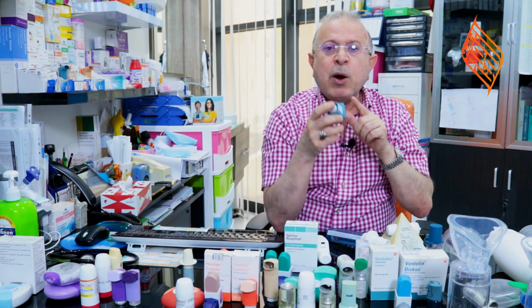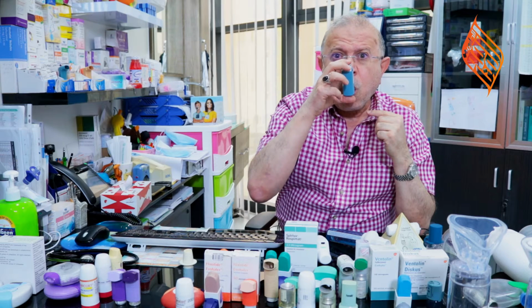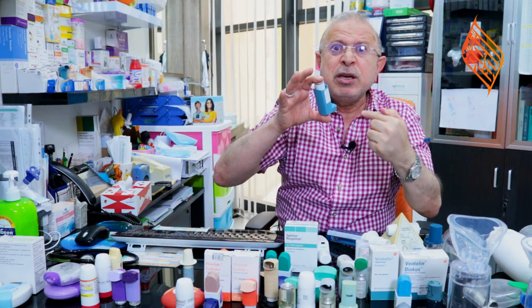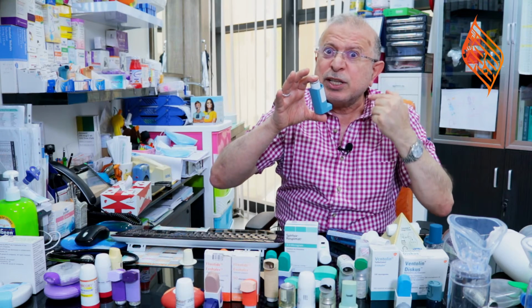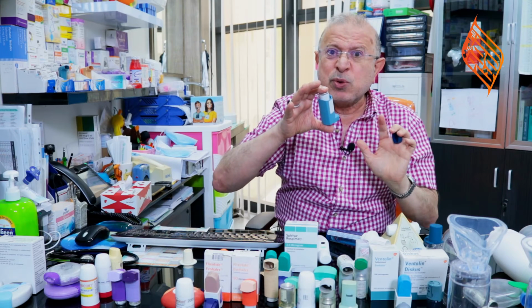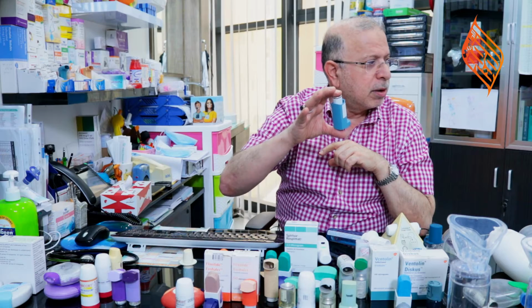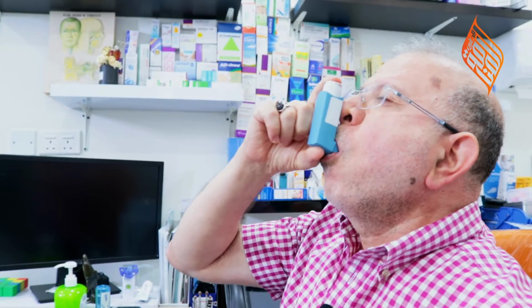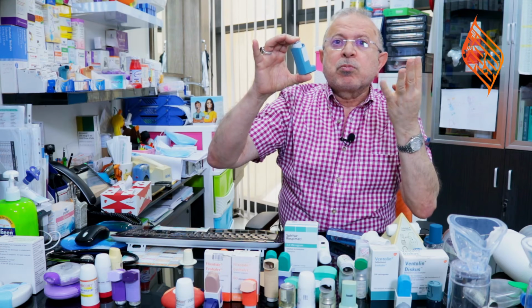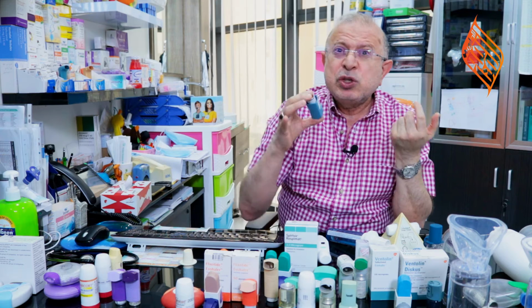Then put this one in our mouth and tighten it around our lips. And then press with your hand while you are taking the breath. But you have to take it slowly and keep your breath as much as you can, 10 seconds or more. This is the way we should do it.